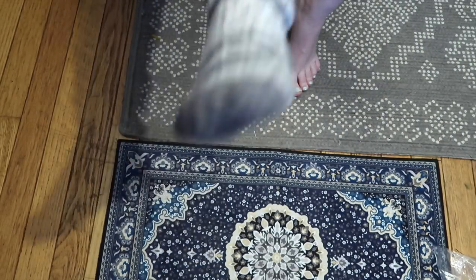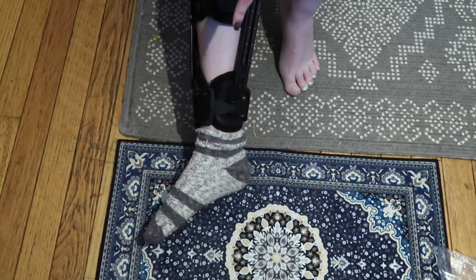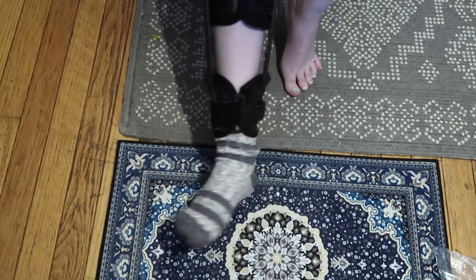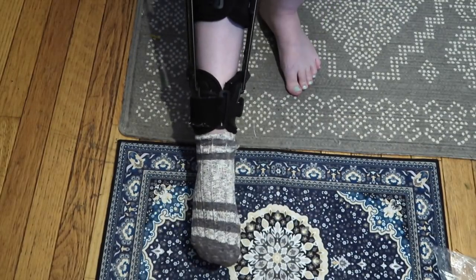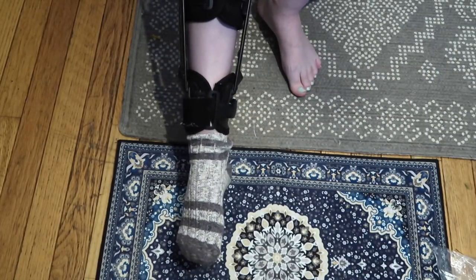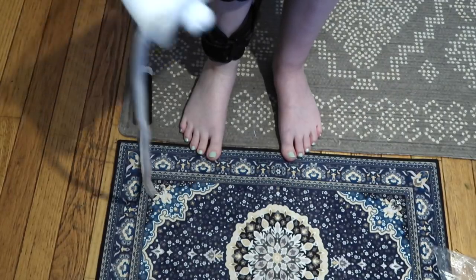I am eating all of my words and I am seriously impressed. It didn't pull it up and over the lip of the bottom of the brace, but that's totally fine — I kind of didn't expect it to. I am so shocked. Starting to love this product. So I am really curious to see how this holds up to the next test.